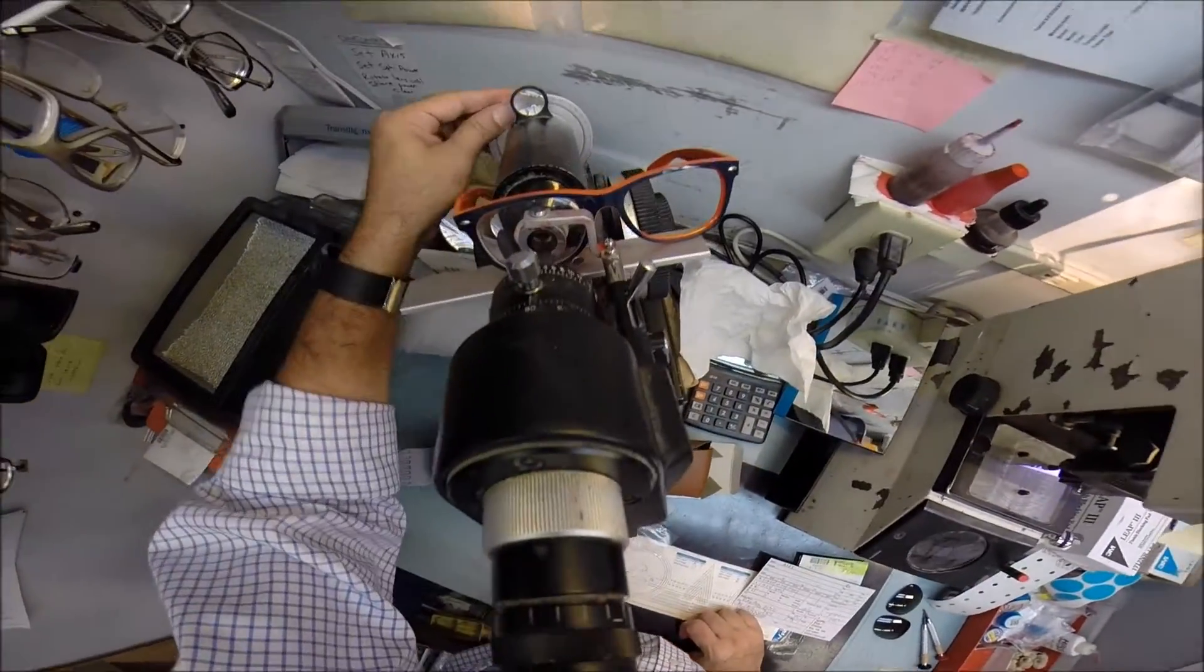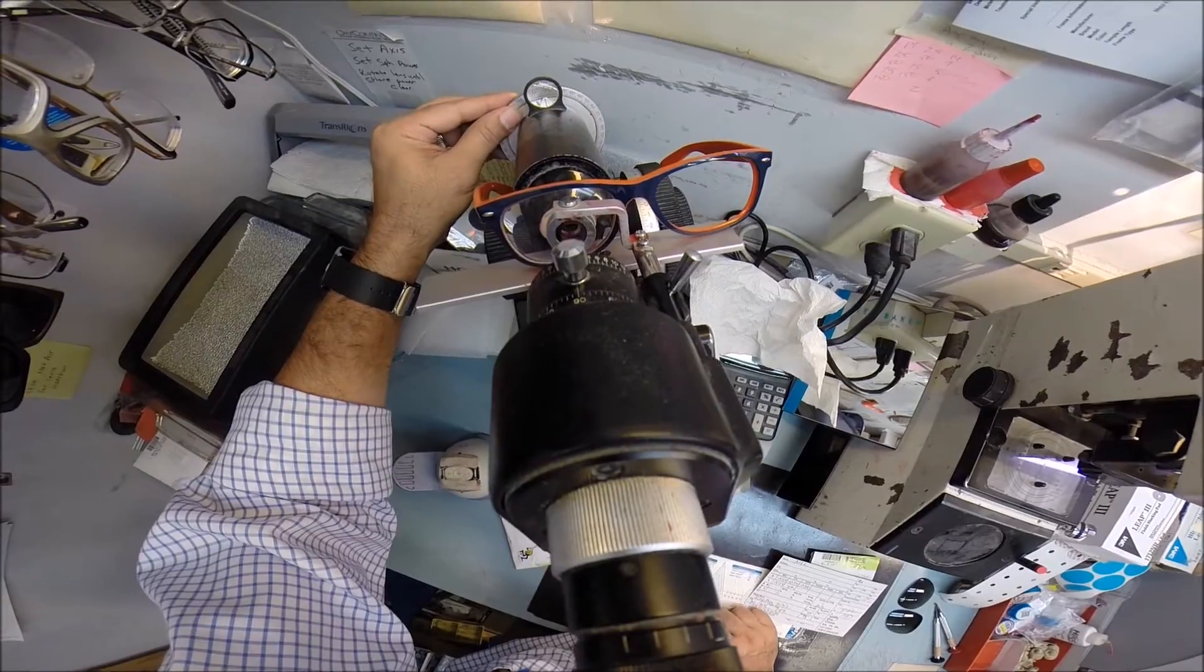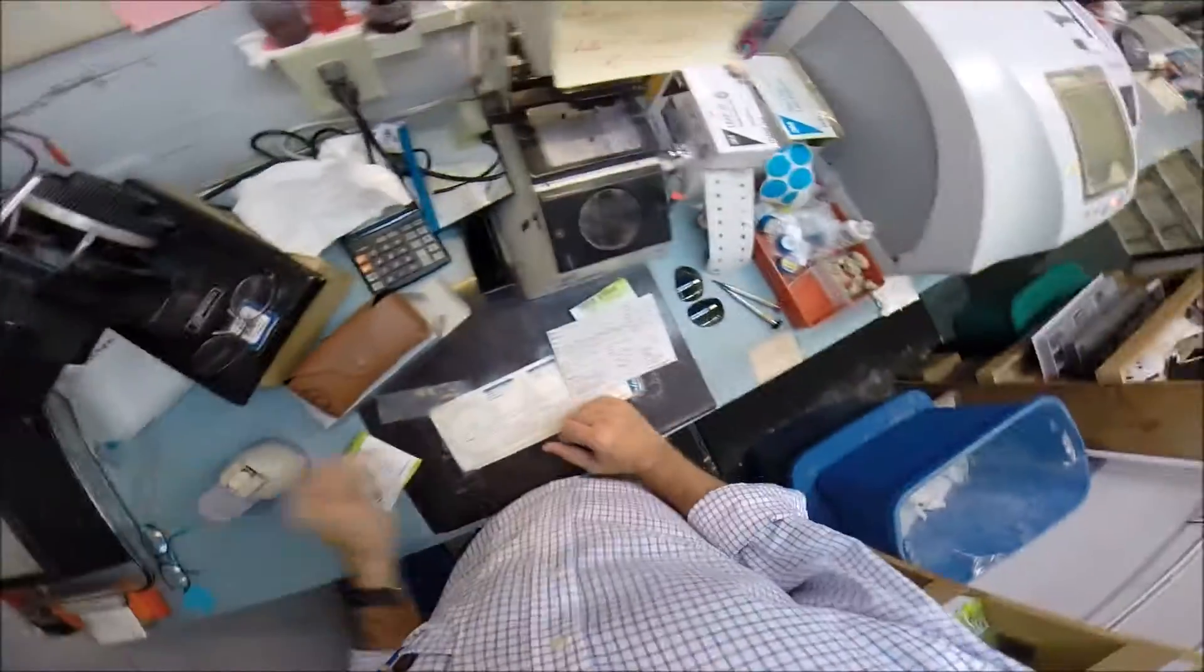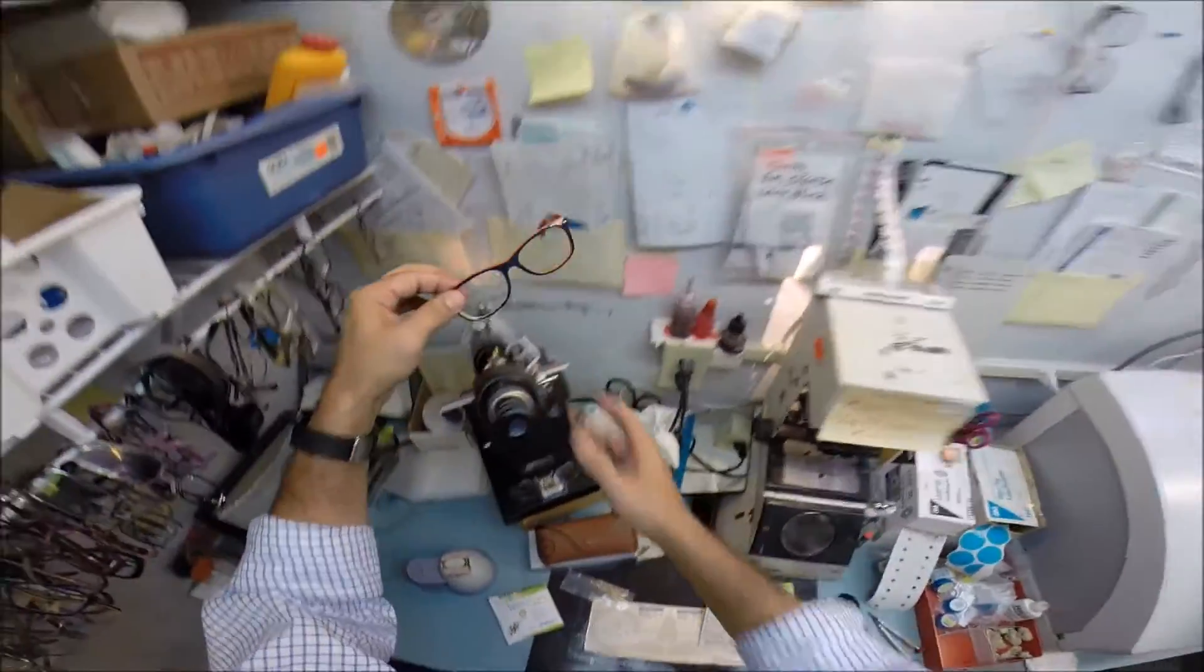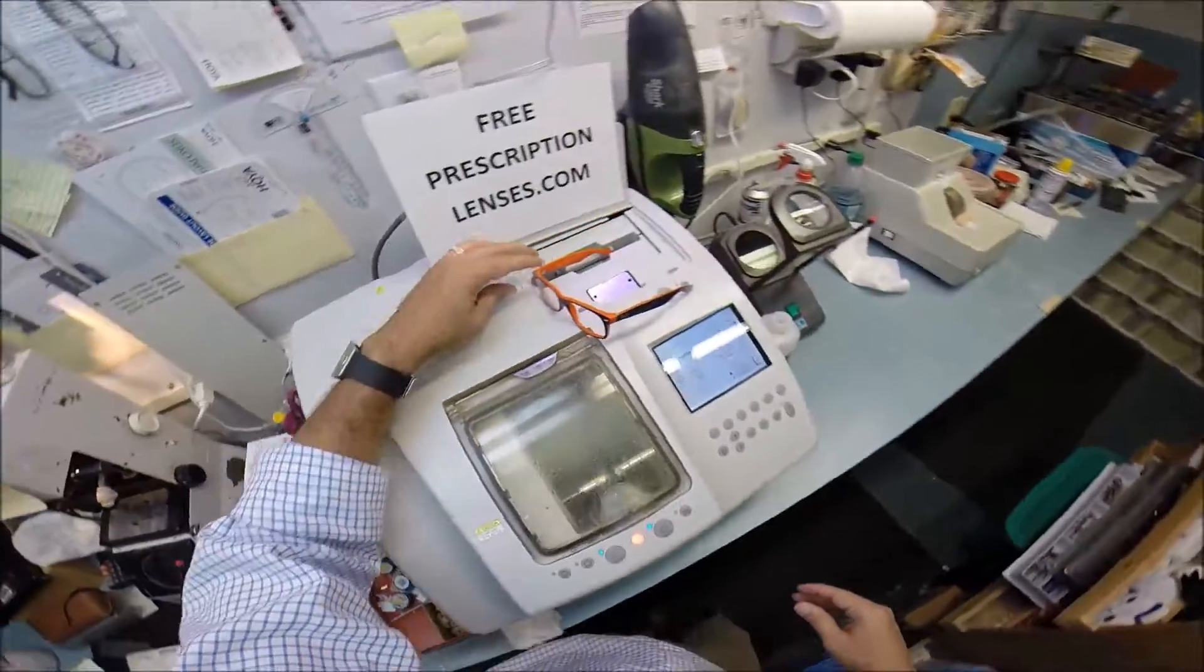If you don't believe me, when I turn this little axis wheel, we've got 170, 175, and then it starts back again at 0. And, hey, look, we've got your frame here. So, let me take that out, because I think we're going to need it.